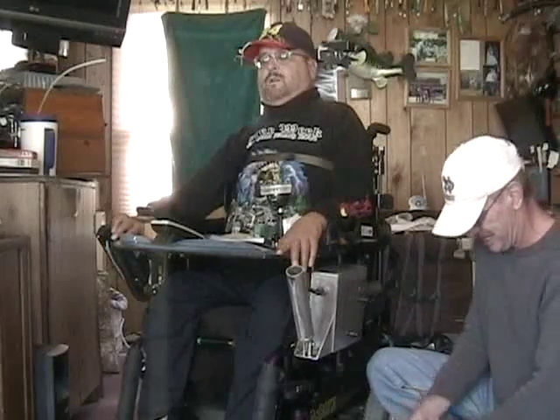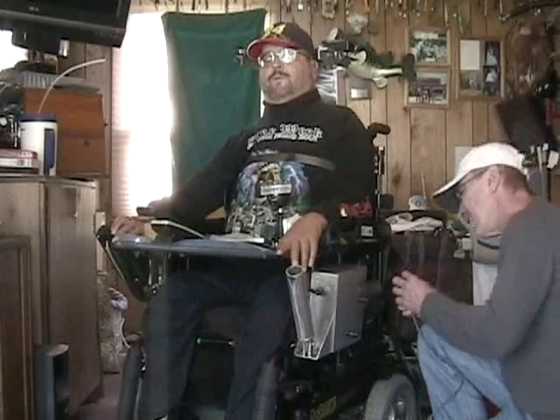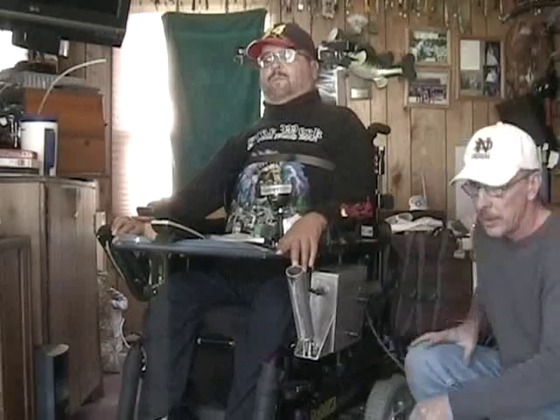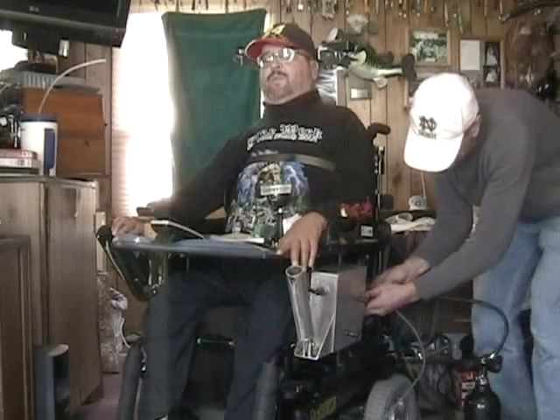With Fishing Abilities Inc., we're hoping to do more than just this Dan's Fishing System. We're hoping to do a one-arm system, possibly set up a different reel — smaller, lighter reel — than what I'm using right now, for someone with one arm who can pump the rod. For people like me, being a quadriplegic, I need this Electromate reel, which has enough power to bring in a fish without having to pump the rod.